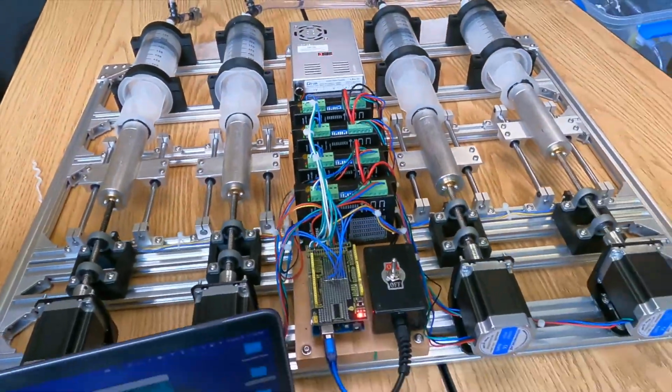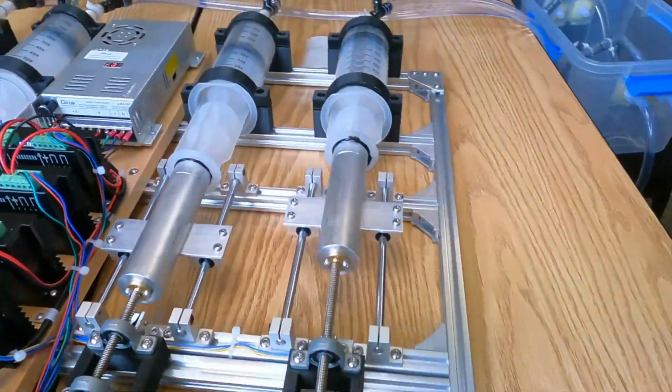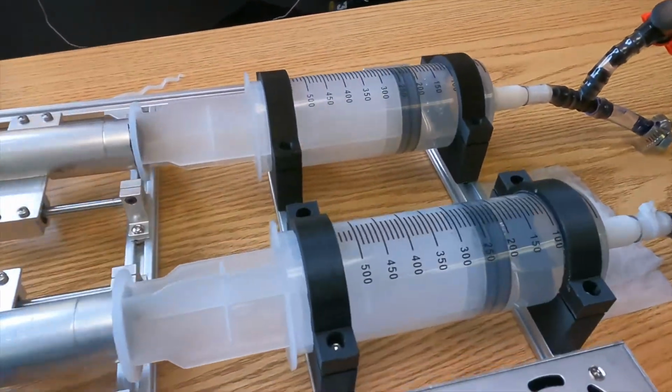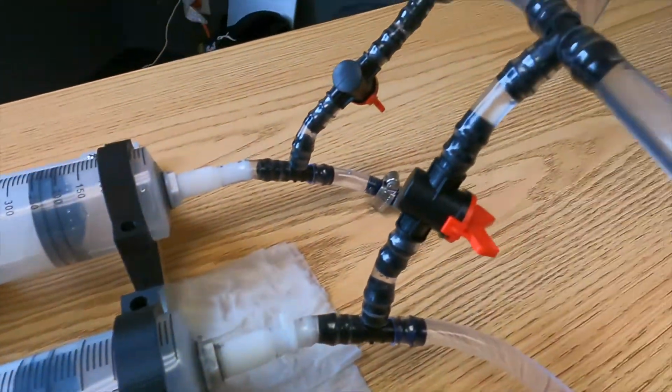This Phantom Cardiac Pump and Control Unit were designed with simplicity and control in mind. This device will be able to assist in advancing the field of medical imaging, and there is great potential for its success and application in medicine.